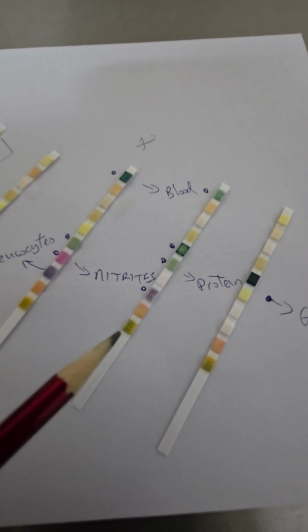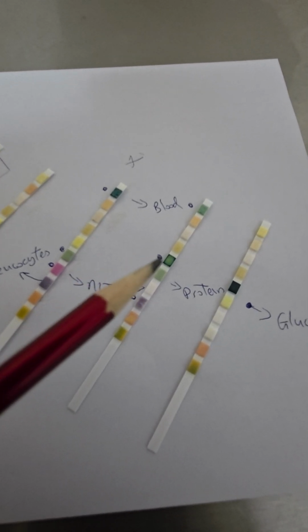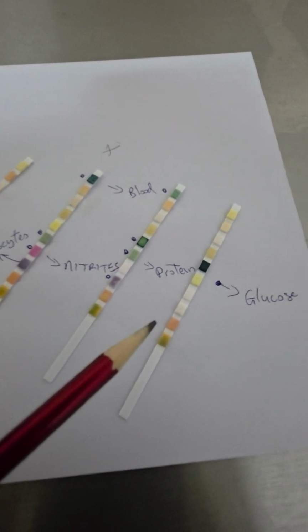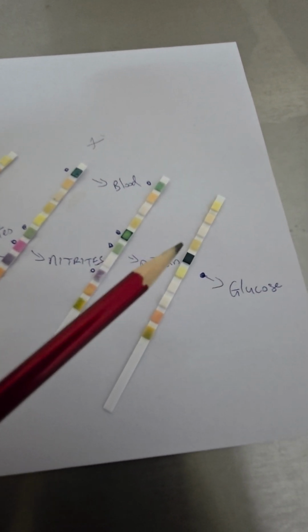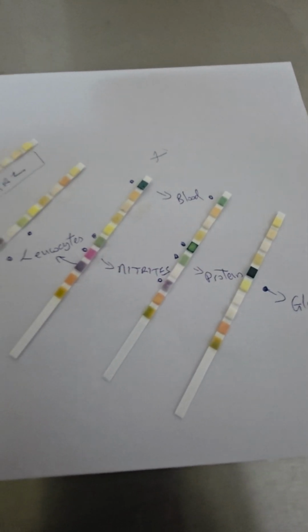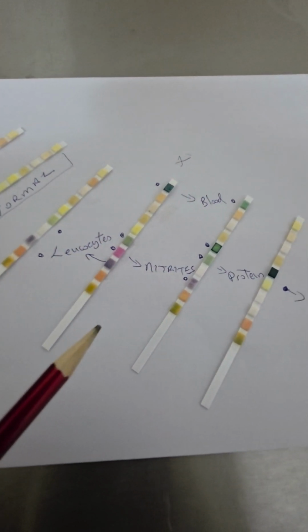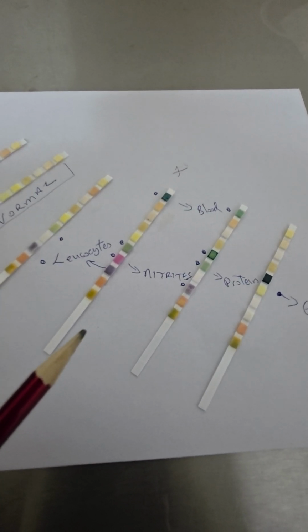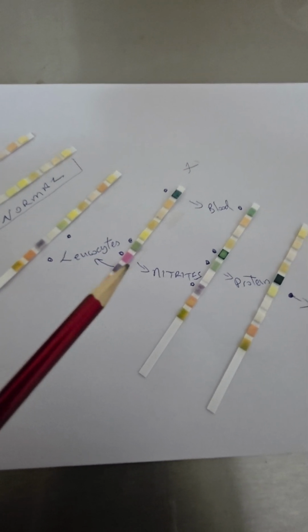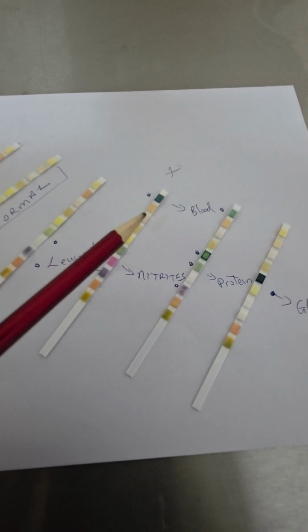Now, also another interesting case, but we've got a lot of leukocytes. This patient has protein, has glucose, significant glucose, and blood. This patient also, everything else in the dipstick is normal, but the patient has a lot of glucose, 4+ glucose. I want to show you something here, how the body is so connected with its different systems. So this patient here has leukocytes, possibly a urinary tract infection, there's protein, but the patient is also passing blood.